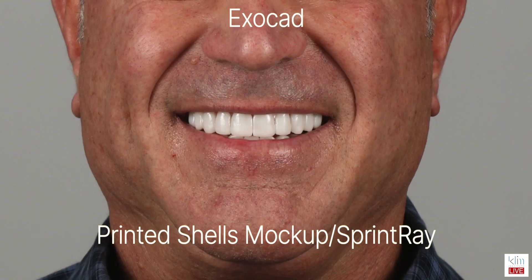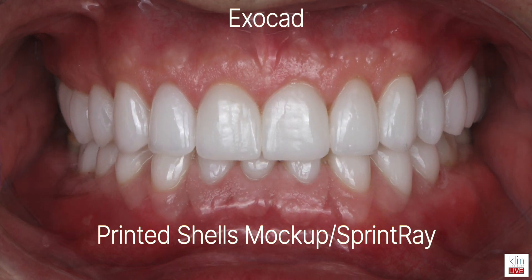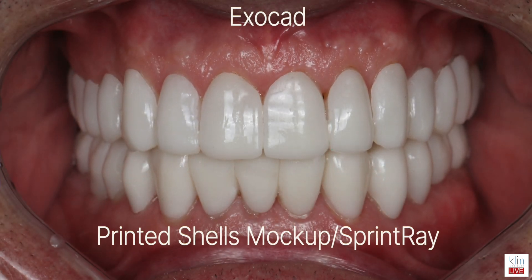I don't think it will. So having said that, there's a time and place for printing — they're accurate, I'm having a lot of fun with it, particularly in my transitional workups. I can make shells, whether to open the bite or for aesthetics, and it's amazing. But I see a big rush right now: is the printed anterior restoration an alternative to a ceramic? And at least with the evidence I've seen thus far, I'm not convinced it is. It's probably not a choice I'm going to make with my type of practice where patients want more than just aesthetics — they also want longevity. And even if I were to drop the price halfway, it's still a lot of money for five years.